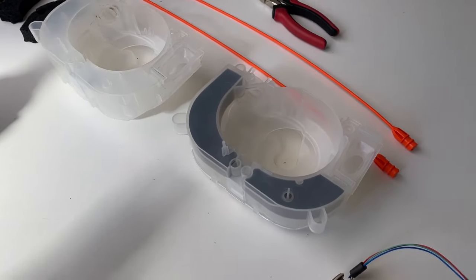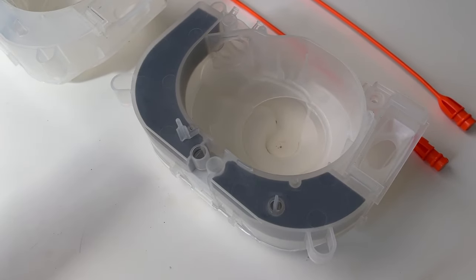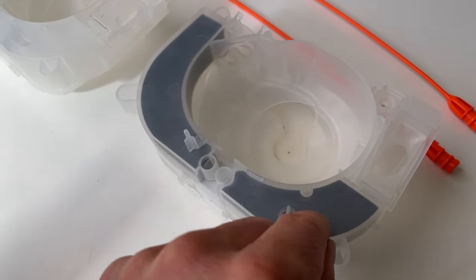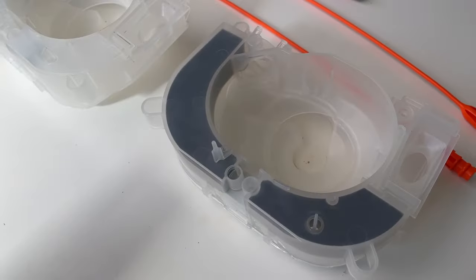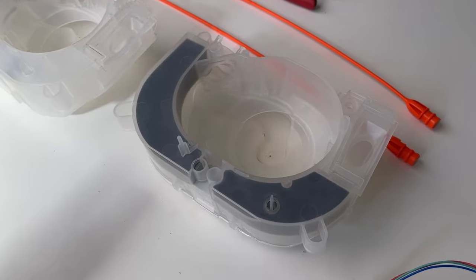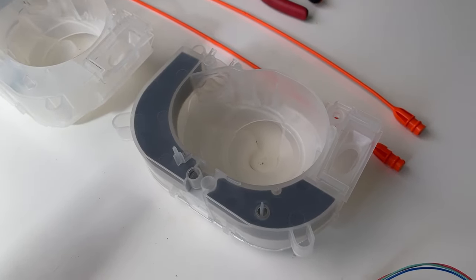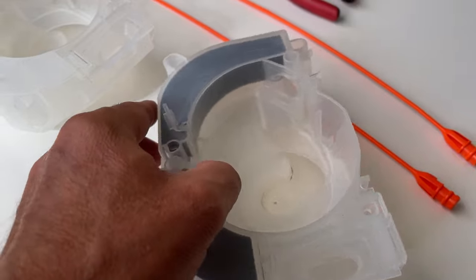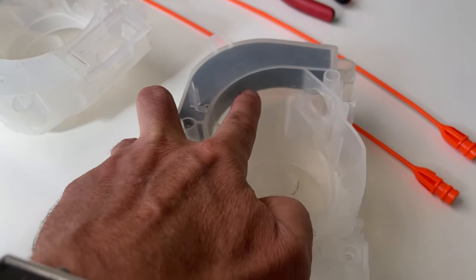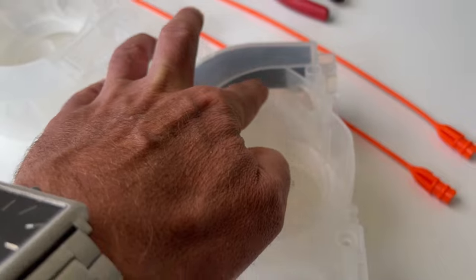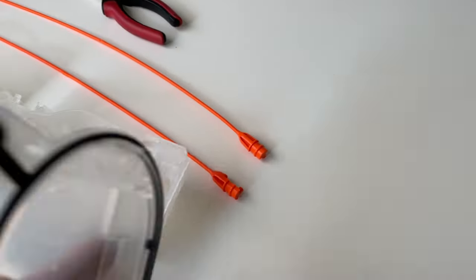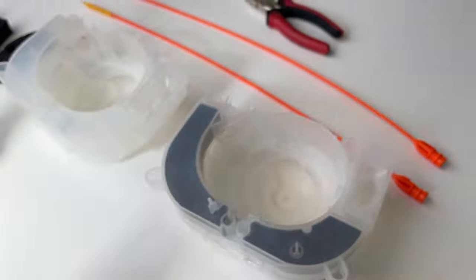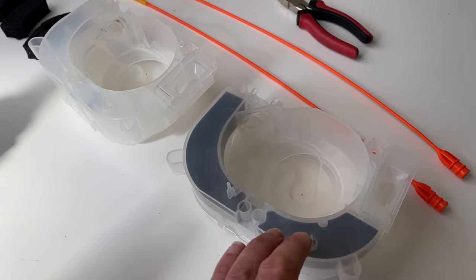Now for those that follow the channel, you might remember when we first took the foam out, we used a dremel tool, cut some holes in the top, and just pulled the foam out using a rusty old fish hook on the end of a lure. Then we changed it so that you make the holes on the inside where the motor sits, and that way when you put the lid back on, everything is all sealed up.